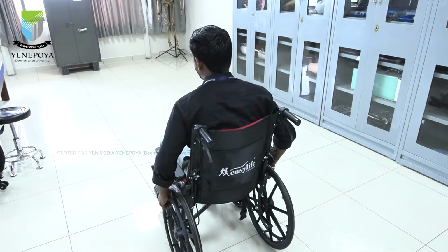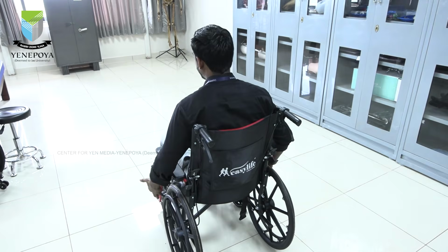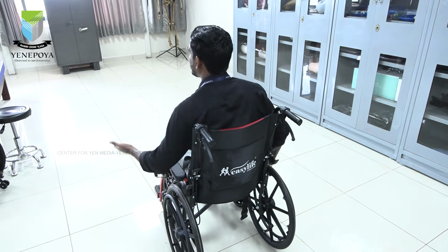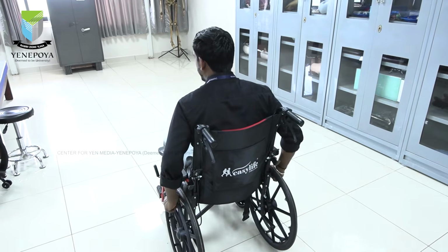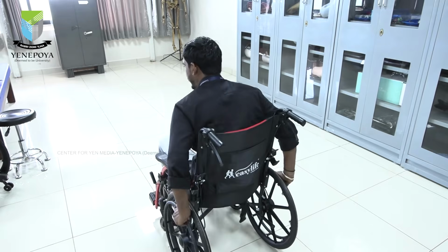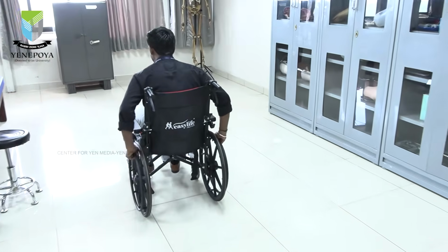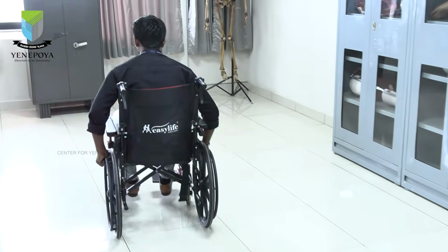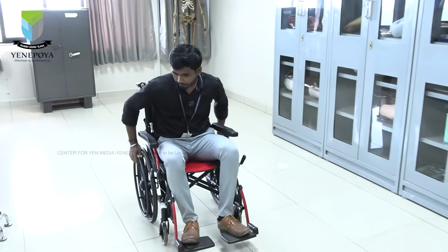So now I am going to demonstrate how the wheelchair is propelled. There are 4 main types, but in practical scenarios only 2 are more common with everybody. So I will just demonstrate. The first one is like an arc. Only a little bit of movement I will do, like this, like this, like this. The same goes, I will turn, I will only come a little bit.